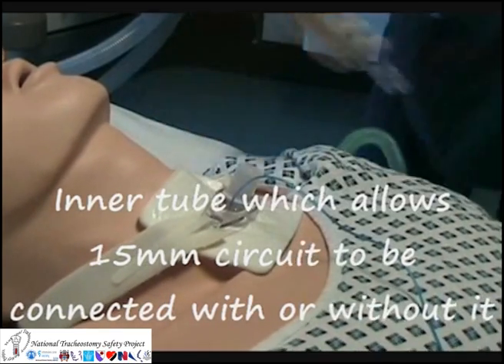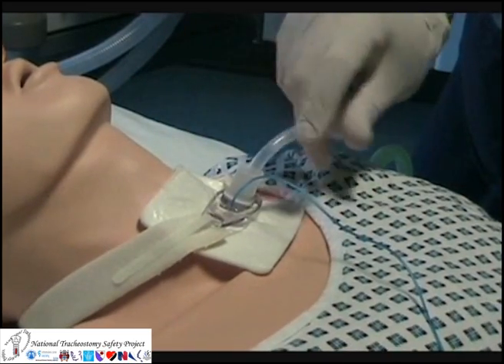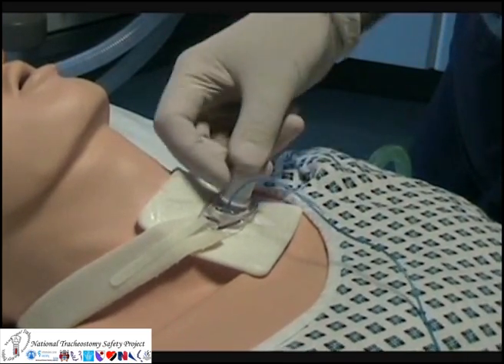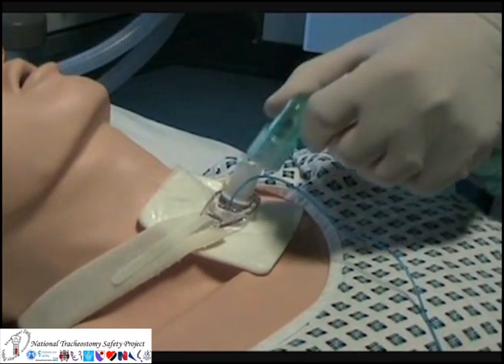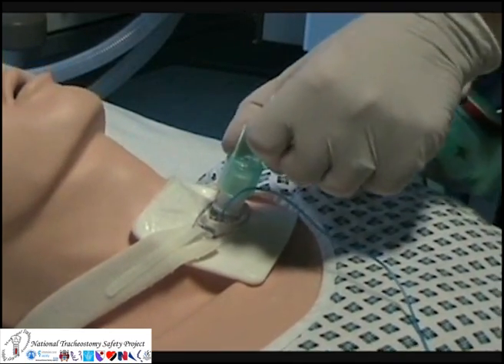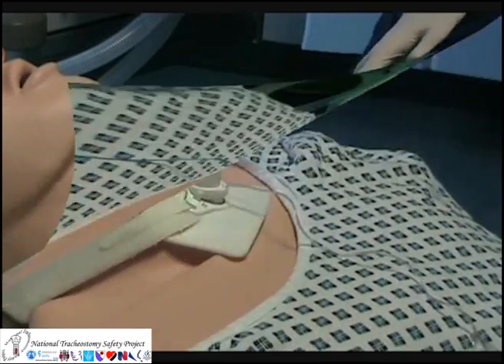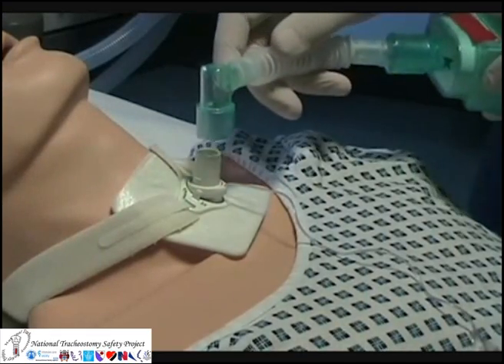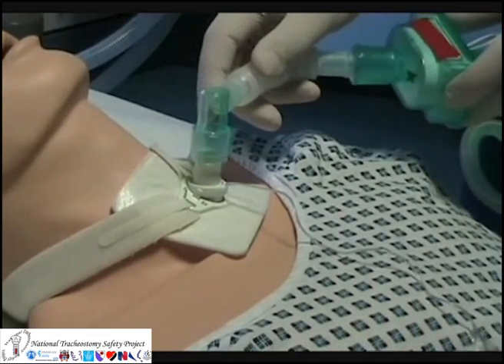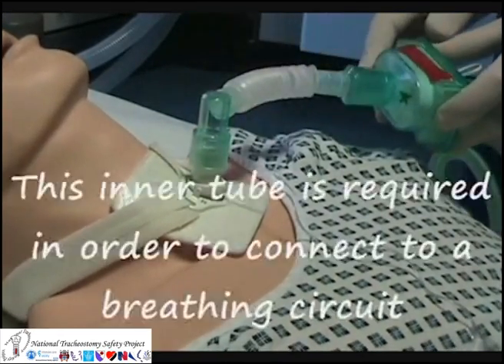This particular tube can be connected up to a breathing circuit with or without the inner tube being present. It's important to know which tubes are used in your areas, because as shown here, not all tubes share this feature.